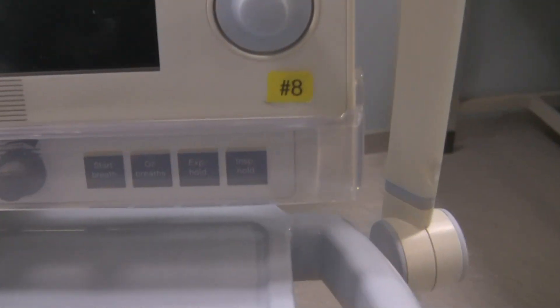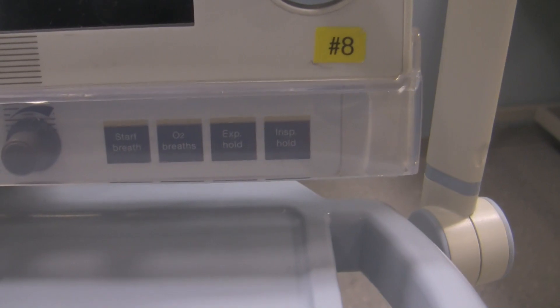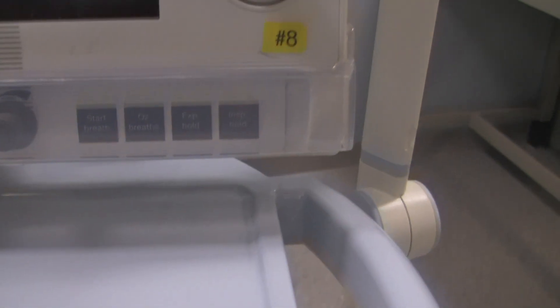There are a couple of other buttons on the other side that function in the same style but don't do the same thing — some buttons for doing ventilation maneuvers on your patients like your inspiratory hold, your expiratory hold, etc. Alright, so that's the main screen.